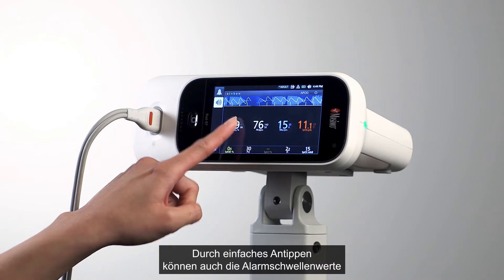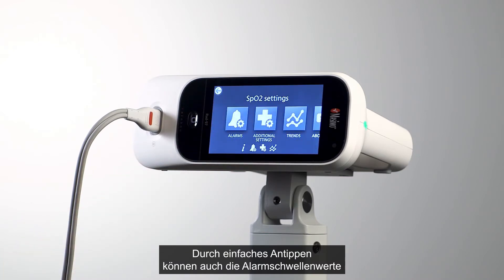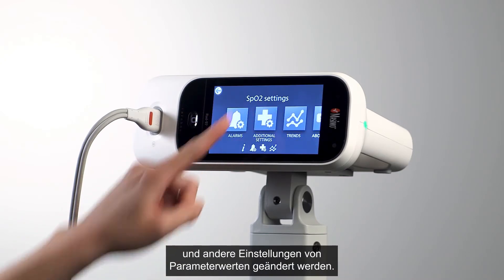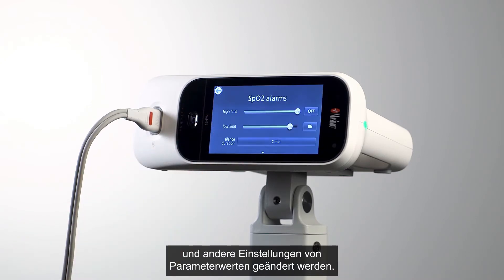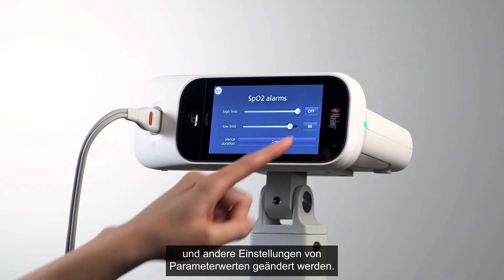Easy one-touch access also allows clinicians to adjust alarm thresholds and other settings by touching a parameter value on the main screen.